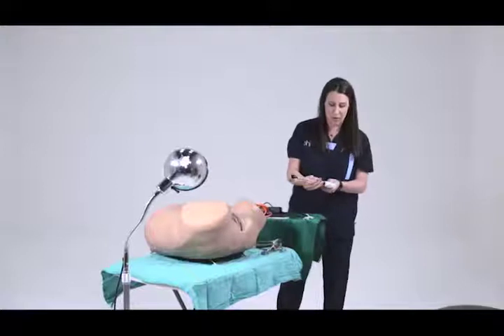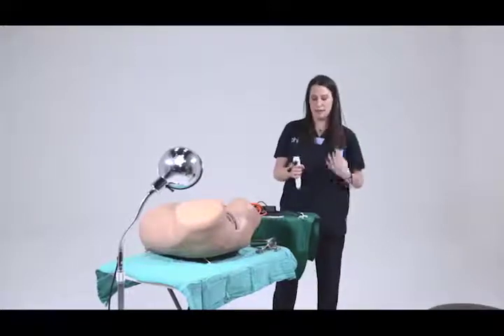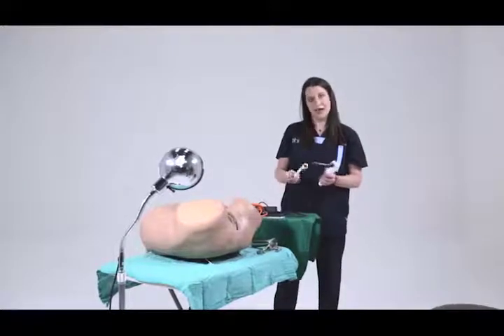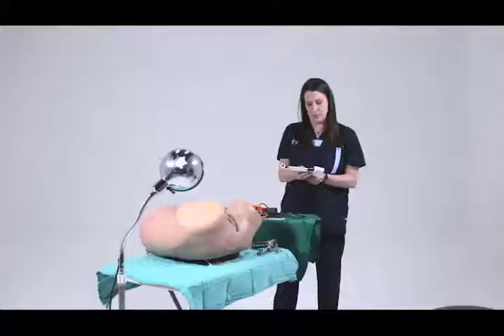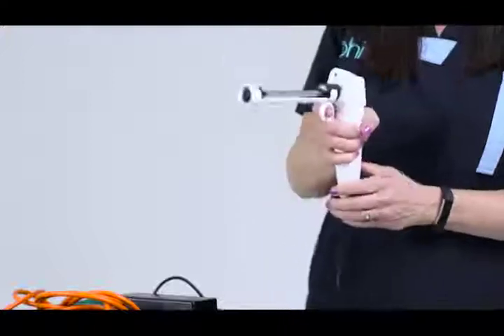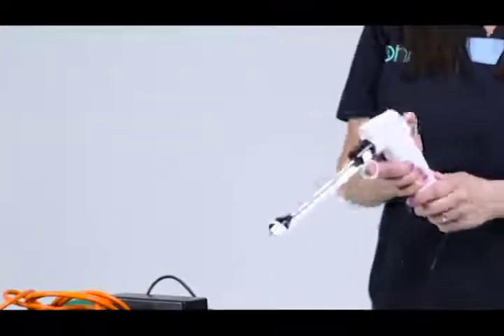This is the probe — it gets put on. There's a little arrow on the front and it just clicks right in. This is the slider which protects the vaginal wall. It also clicks into place just like so, and then you're almost ready to do the procedure.